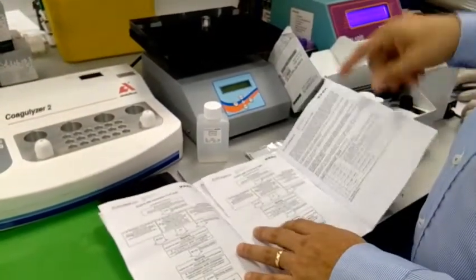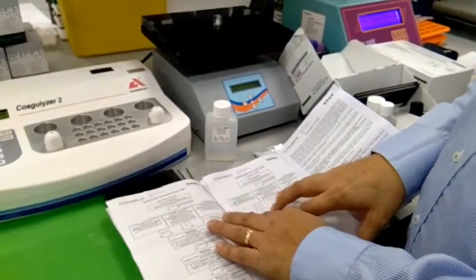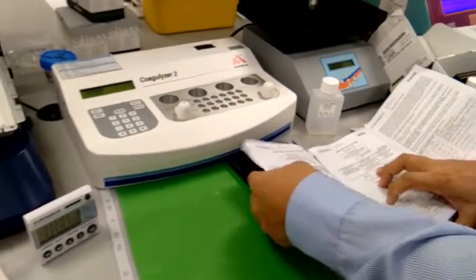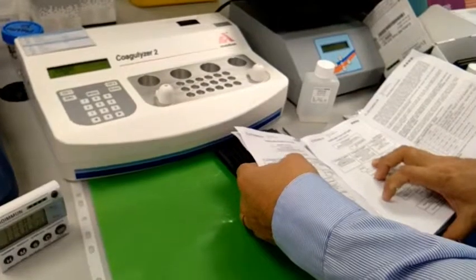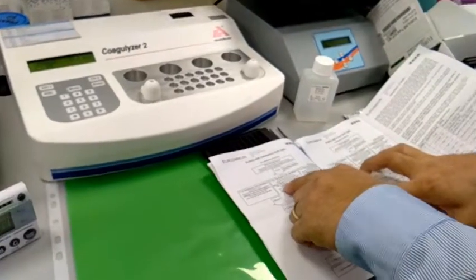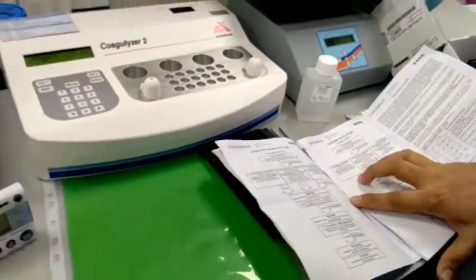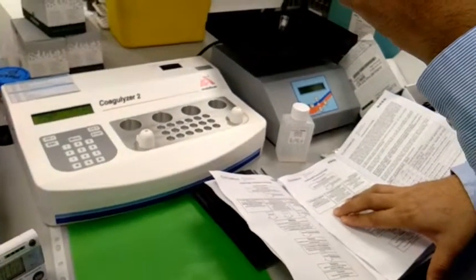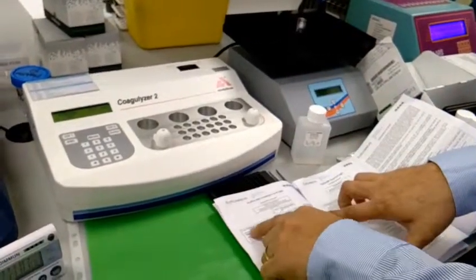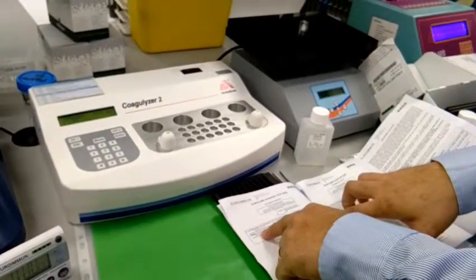There are 3 varieties for the sample incubation — primary sample incubation. If you will use an undiluted sample, you have to pipet at least 400 µL. If it is diluted, you have to pipet 175 µL of sample plus 250 µL of the working universal buffer solution. If you will use sample A, you have to incubate primarily for 60 minutes, 1 hour.